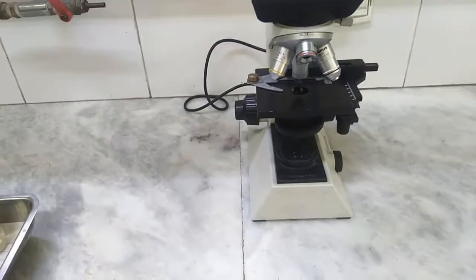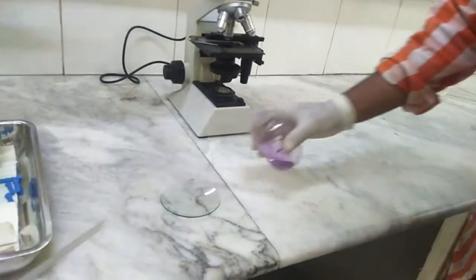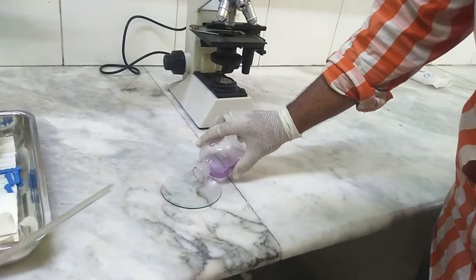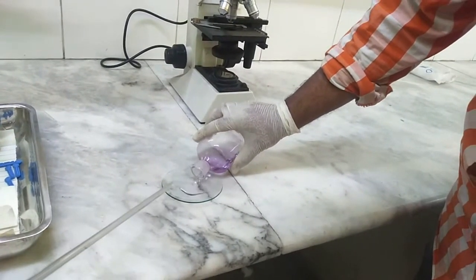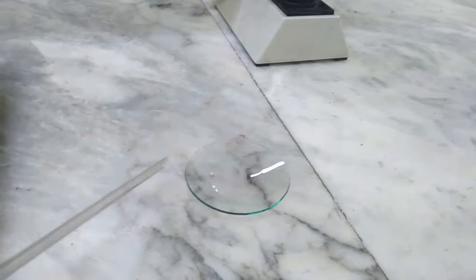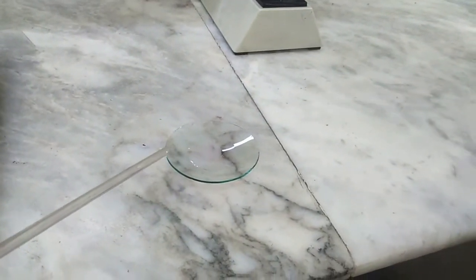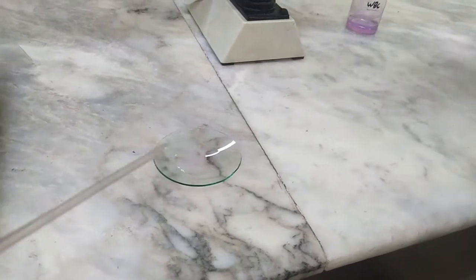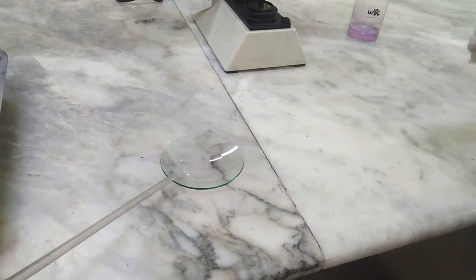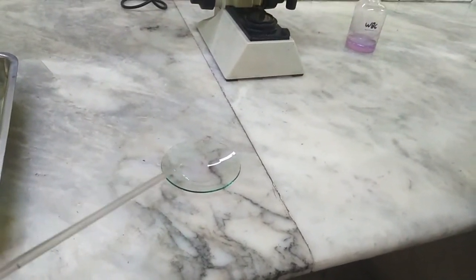Starting with the procedure of this practical, the first step is that we take the Turk's fluid in the watch glass. It is roughly 3 to 5 ml taken in the watch glass. This will make it easier to later take it into the WBC pipette.